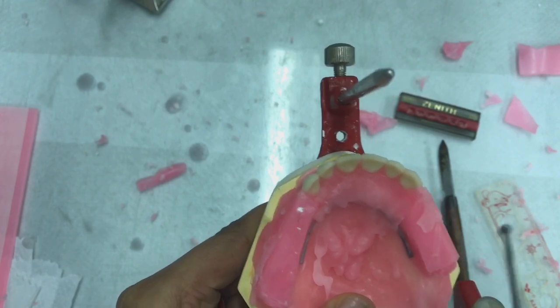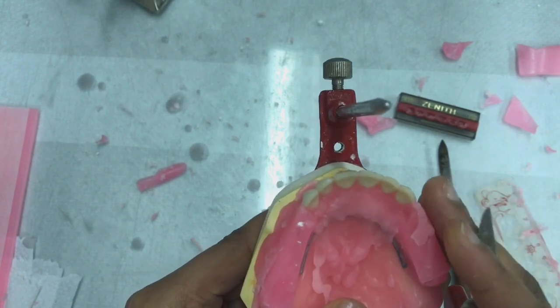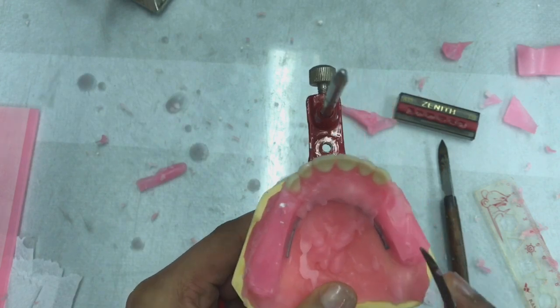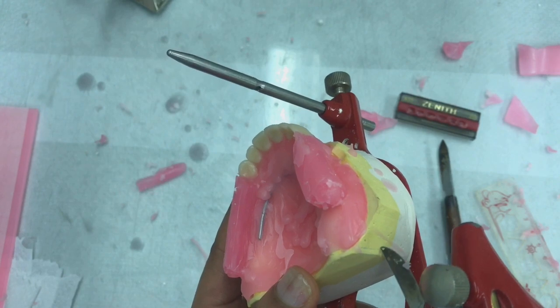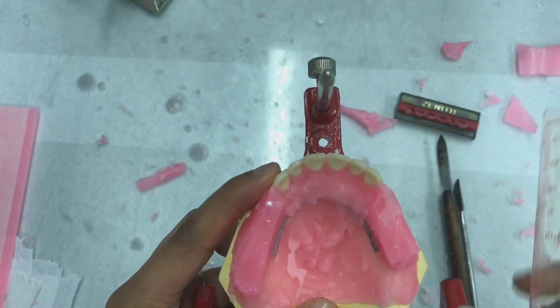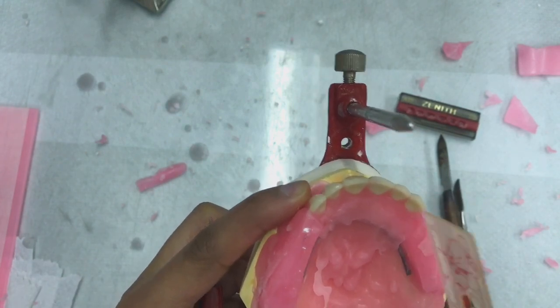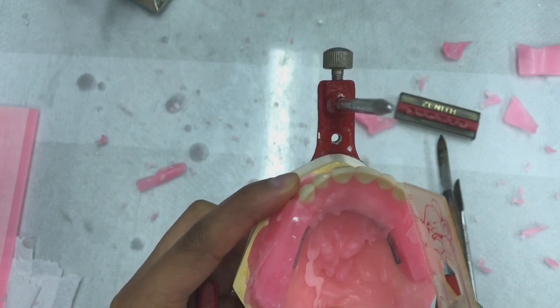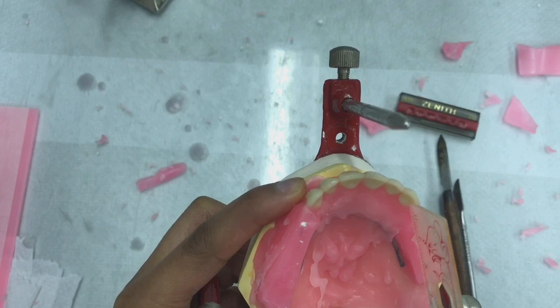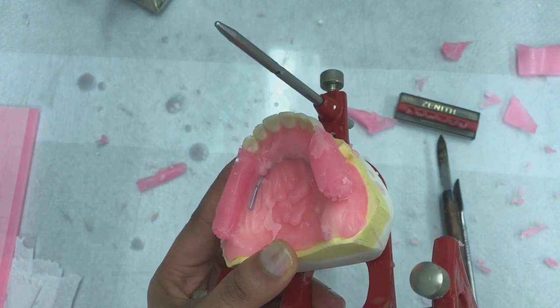So what we are going to do is, when we're positioning each posterior tooth, we're going to maintain a straight imaginary line that starts at the center of the canine's cingulum, and that imaginary line is going to end at this 2 millimeter distal line that we had drawn. As much as this is an imaginary line, we are going to use our rulers to ensure that the maxillary posterior teeth's developmental grooves or central grooves are in line with this imaginary line that will start from the center of the canine's cingulum and end at the 2 millimeter distal line that we have drawn here at the back of the model.